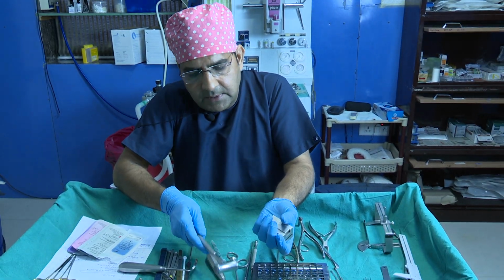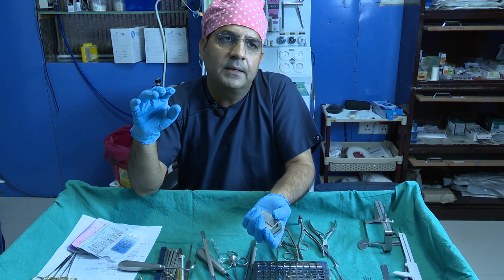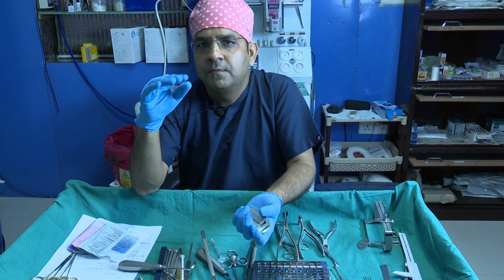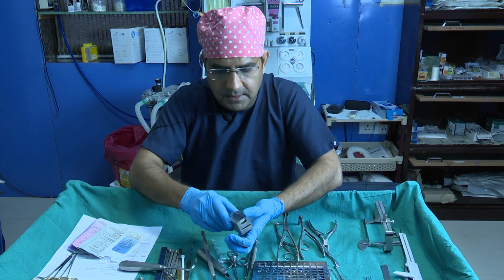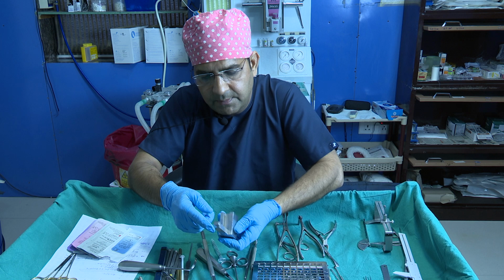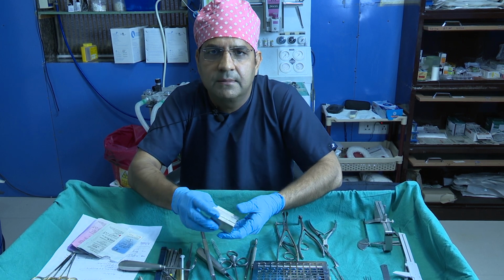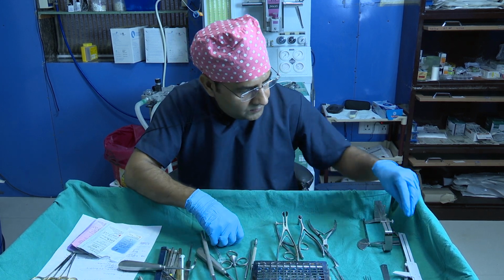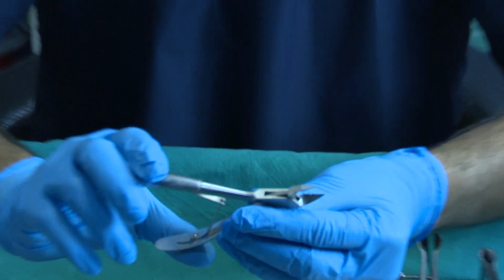Sometimes when you use some graft just to camouflage a defect, or sometimes you just use a small piece of graft as a cap graft for the undersurface of the lateral crus deformity. So this is a good instrument. You can purchase it, this is by Kalilkar also, not too costly. And we have another one, this is by Marina Medical.